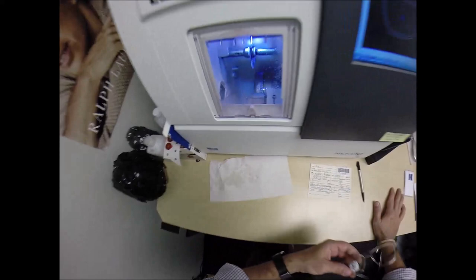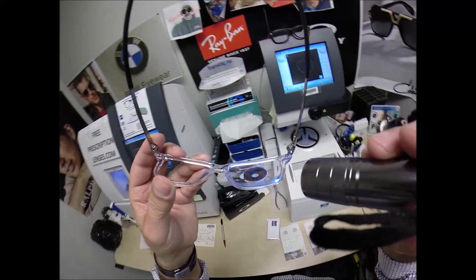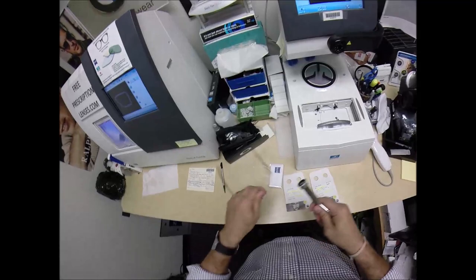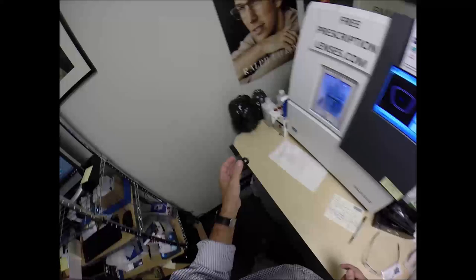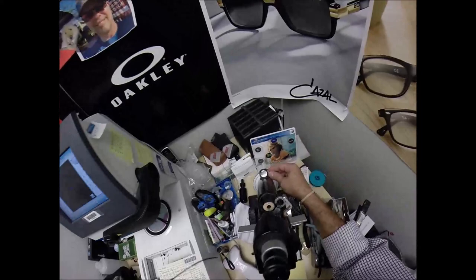The old carpenter saying — measure twice, cut once — it's measuring the thickness of the lens at every point to know where to place the bevel, so you have the least amount of edge thickness showing. Rod, you got nothing — you got no edge thickness at all.